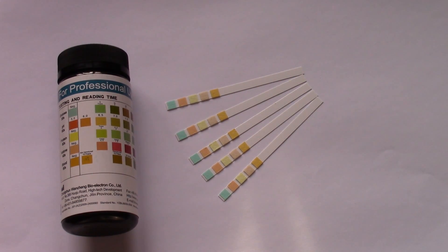The reason being atmospheric moisture absorption will in some cases, particularly on certain parameters, spoil these test strips. You can have that occur within 24 hours if you leave these open in a steamy bathroom. You'll find the pads no longer resemble the normal starting color that we're showing you here.